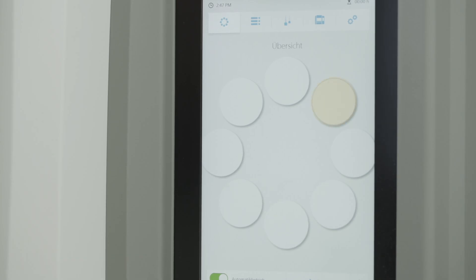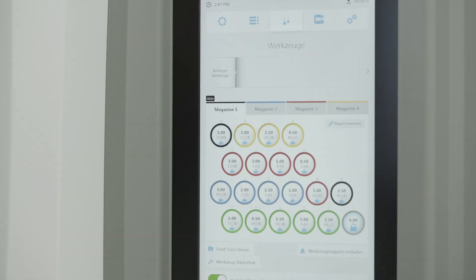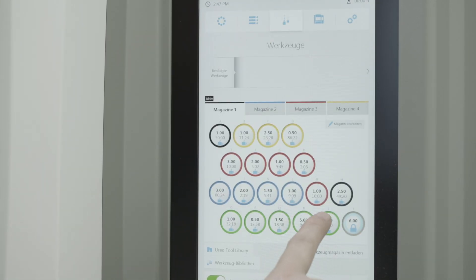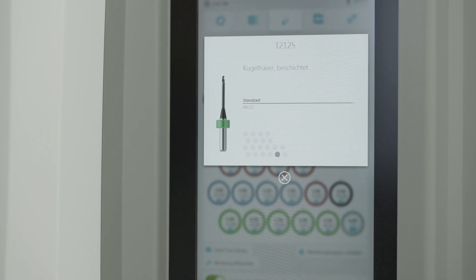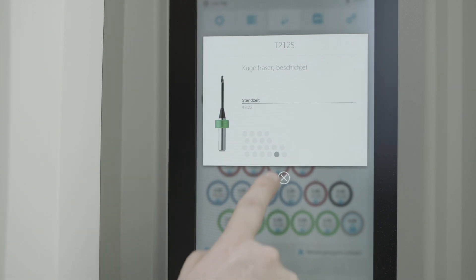Select the PROGRAMIL Tool Green 2.5C for PM7 to perform the calibration job. Insert the milling tool into the tool magazine.